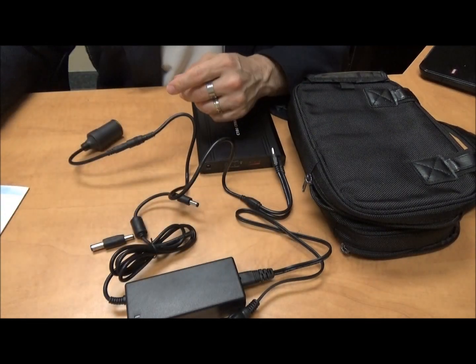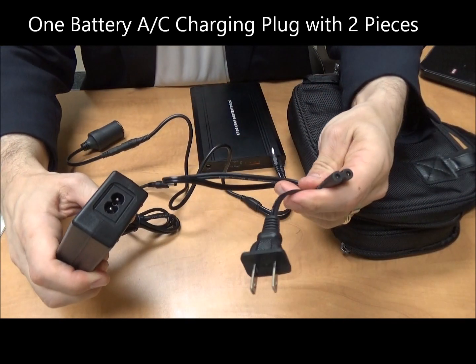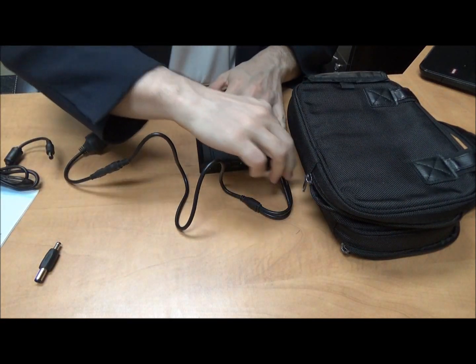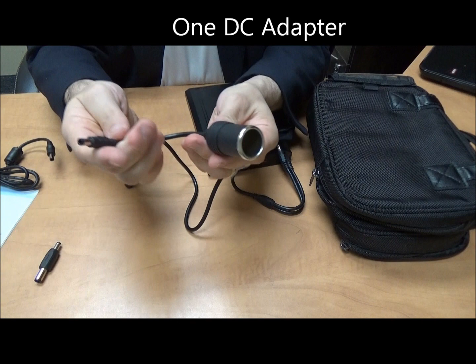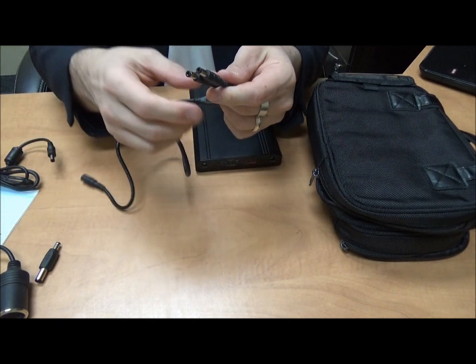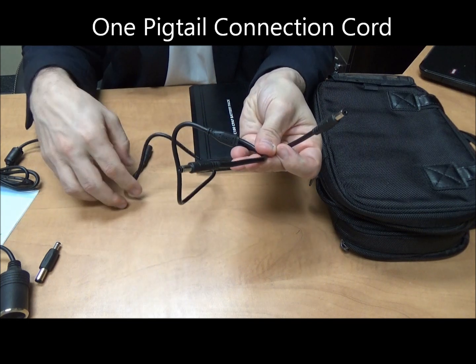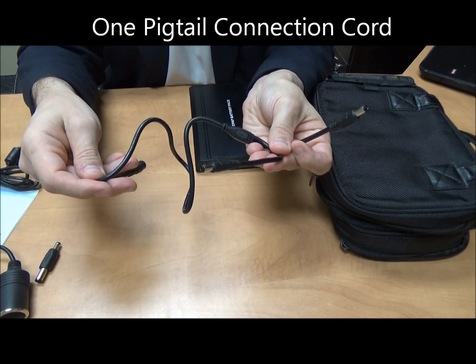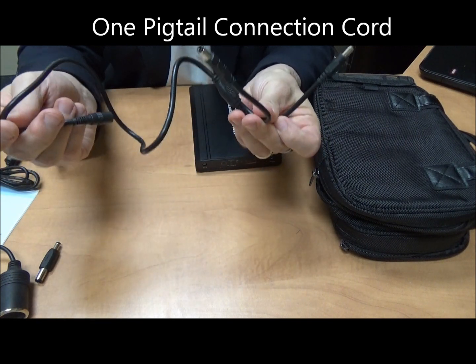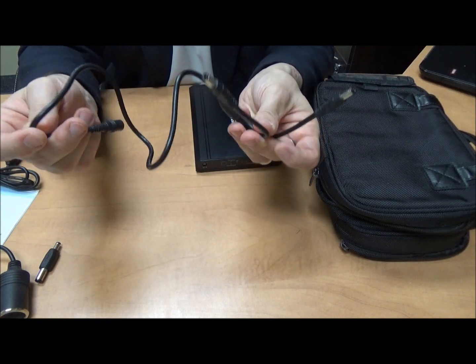The manual, the AC plug complete so you can charge up your battery, the DC adapter, and the pigtail cord that is responsible for charging up your CPAP machine and is a prime connection between your CPAP machine and the battery.